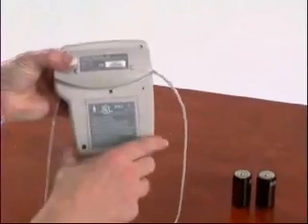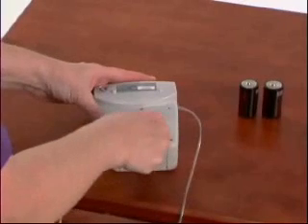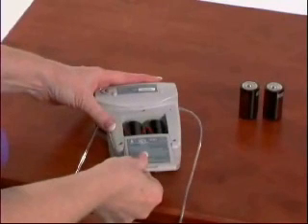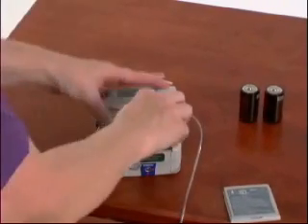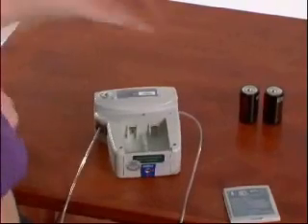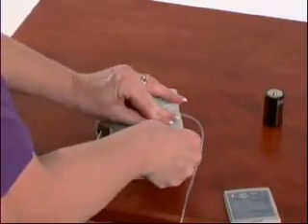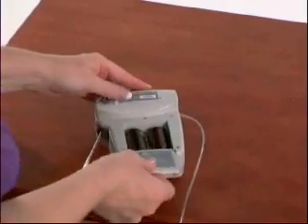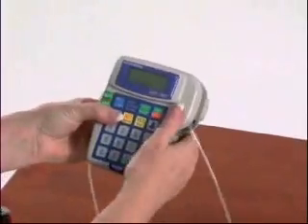The battery door is located on the back of the pump. Turn the pump off. Insert a penny, a key, or a flat object into the slot at the bottom of the battery door and push down to depress the metal ball at the bottom of the door. While the ball is depressed, slide the door down and remove it from the pump. Install two new C-cell batteries with the positive poles at the top of the battery compartment. Slide the door back into place with the UL seal at the top and push up until a click is heard to close the battery door. Then turn the pump back on.